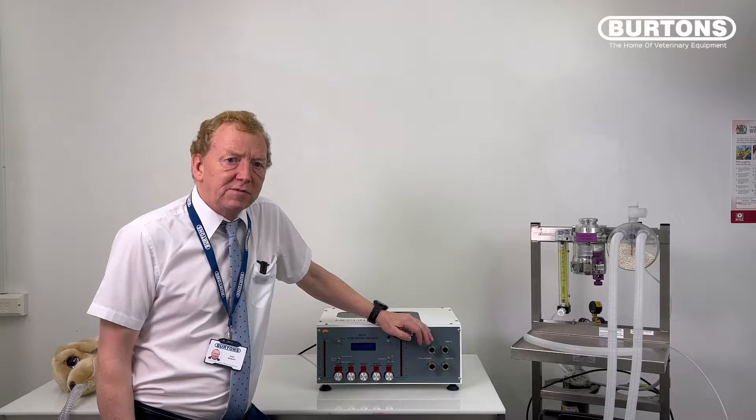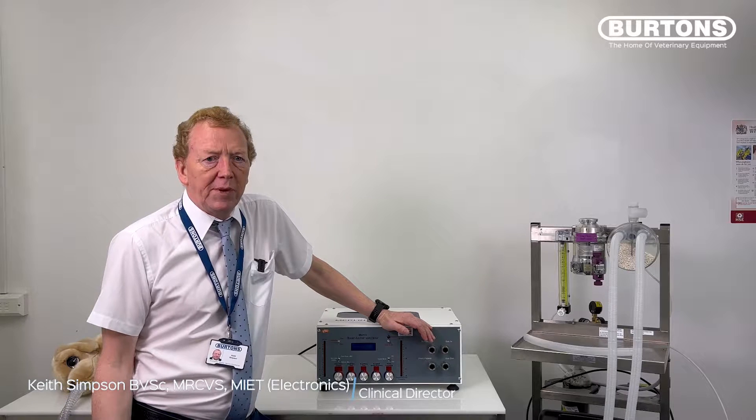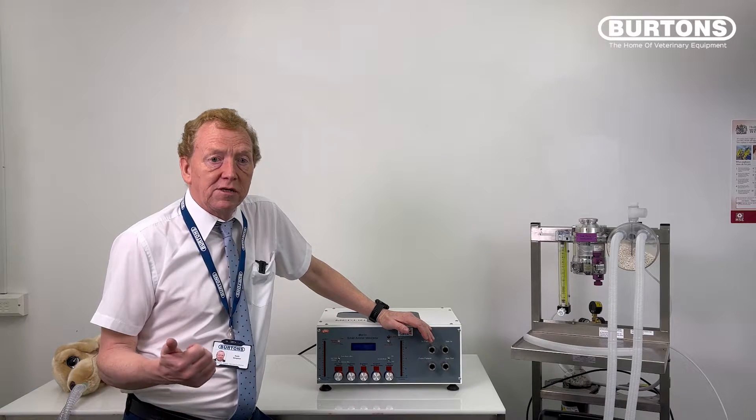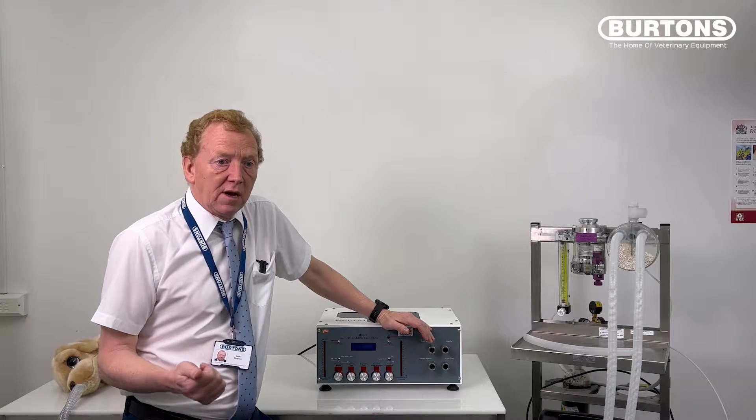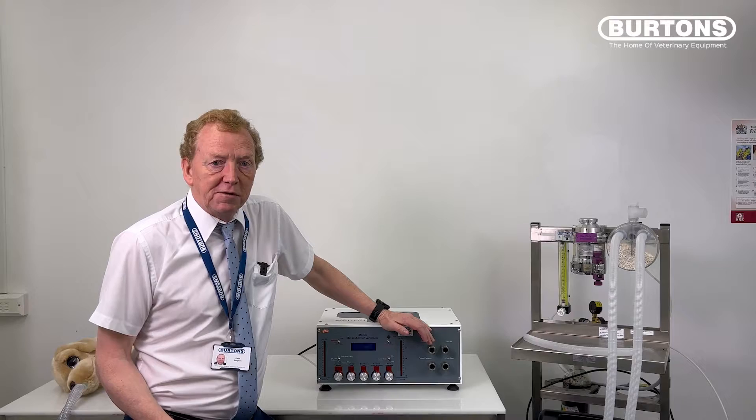Hello and welcome back. My name is Keith Simpson and this morning I'm going to introduce you to the Merlin. I just want to run through the quick things you need to do every day before you use your Merlin. We're going to look at initial checks, initial plumbing requirements, and initial settings for first use.